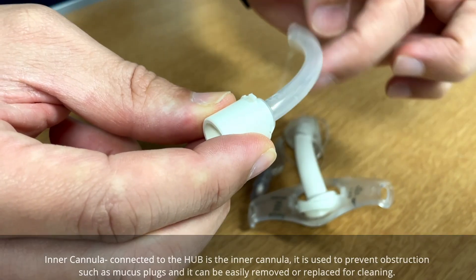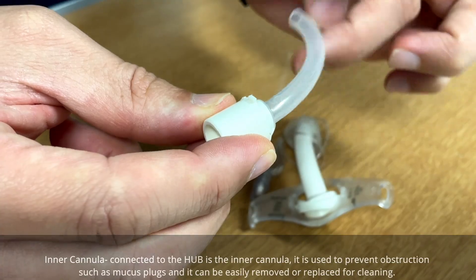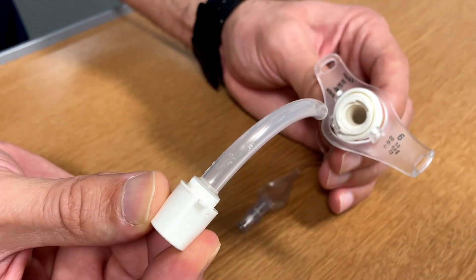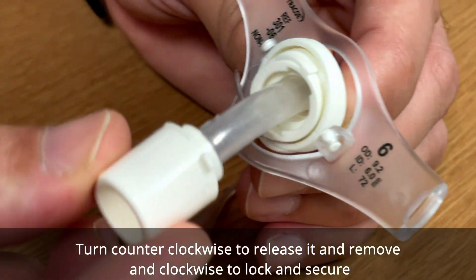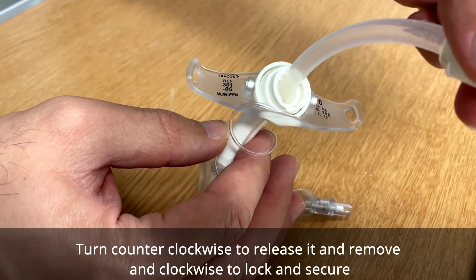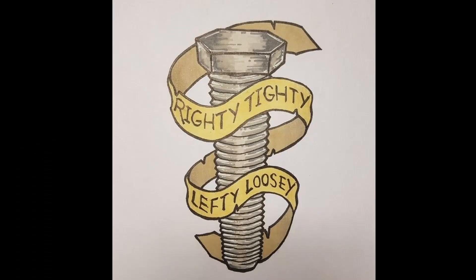The inner cannula connects directly to the hub and prevents mucus and secretions from blocking the airway or tracheostomy. To remove it, turn it counterclockwise — to the left — to release it. To fix it in place, turn it clockwise — to the right. Remember: right is tight.